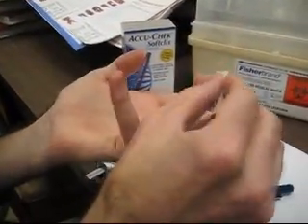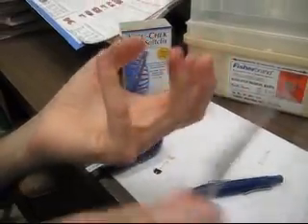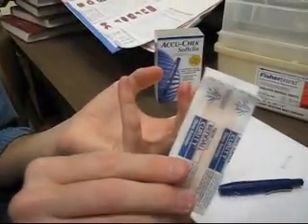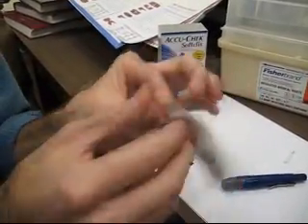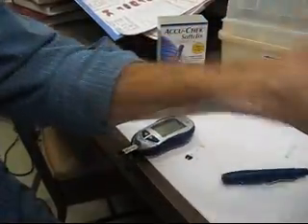You're not done yet. Clean off any blood with the alcohol wipe and place a band-aid on your finger.